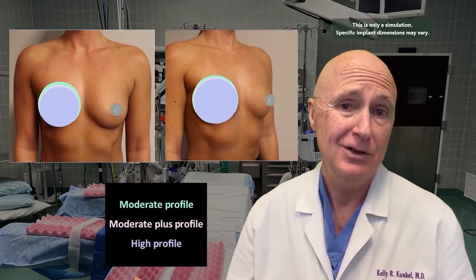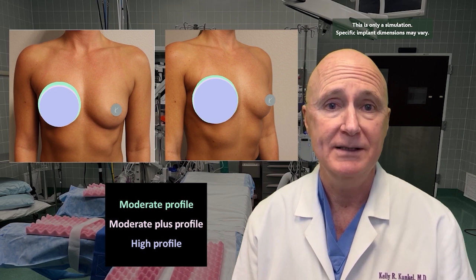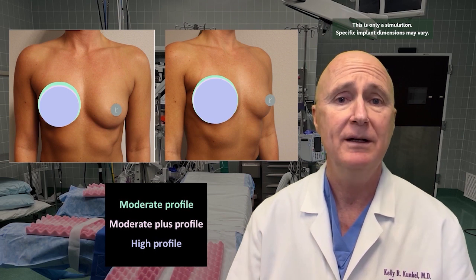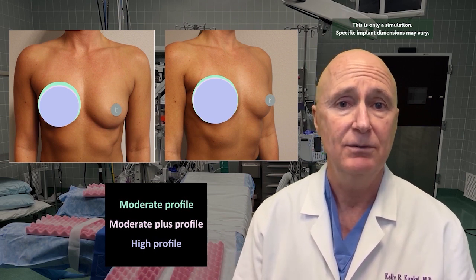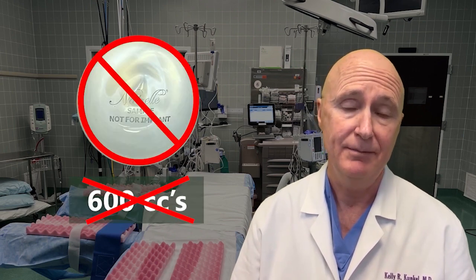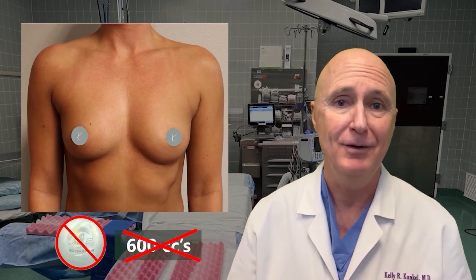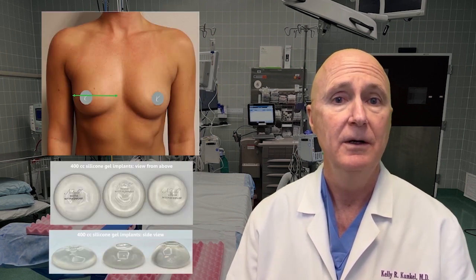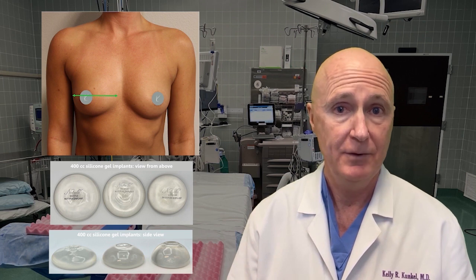Now, in this case, I wouldn't choose a 400cc high profile breast implant for her because it'd be too narrow. She wouldn't get the cleavage she wants. She wouldn't get the height that she wants. If she wanted it to be a really large and noticeable result, then I might choose a moderate plus or a high profile implant that's as wide as the breast is. But in that case, now we'd be transitioning from a 400cc implant to a 500 or 600cc breast implant, and personally, that would be a disaster on this patient. I would never put that size implant in this patient. But that's an example of how we think about breasts and think about which profile breast implant to offer to somebody.